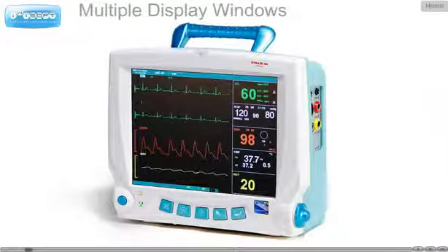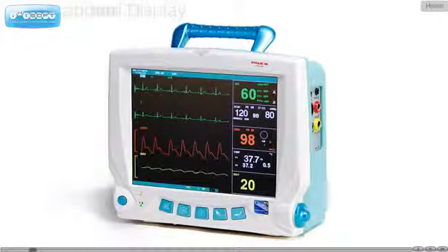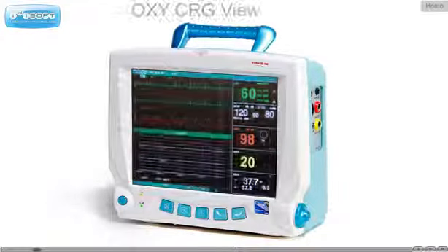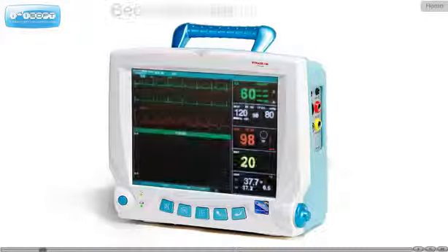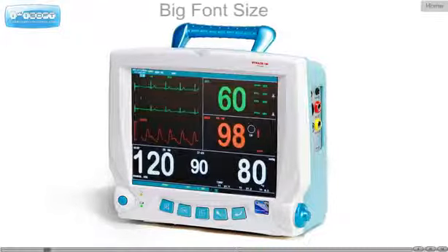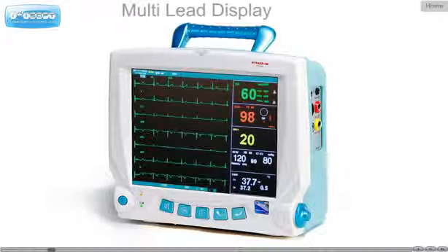The Trace monitor has different display modes like standard, oxy-CRG view, trend, bed-to-bed view, big font, and multi-lead display.